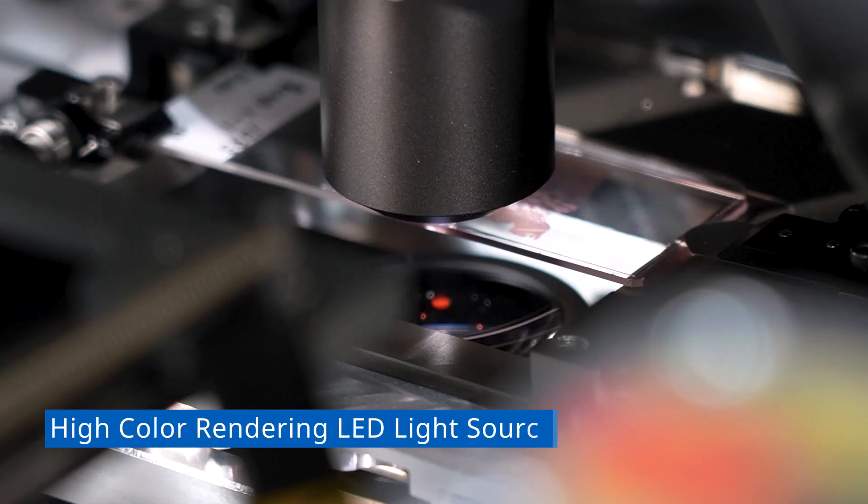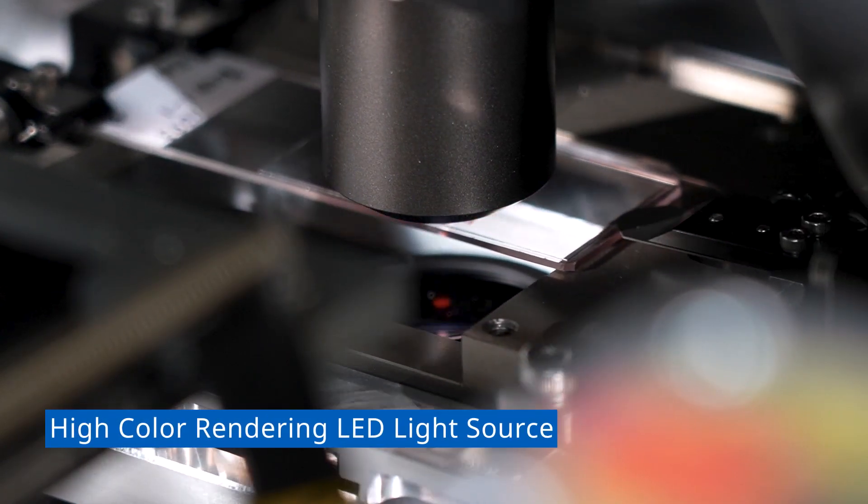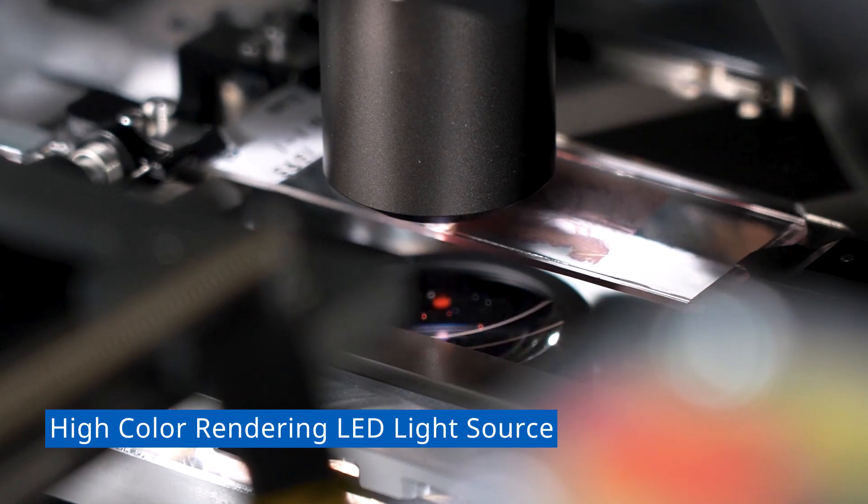The objective is paired with our TrueColor LED light source to provide true-to-life color reproduction.